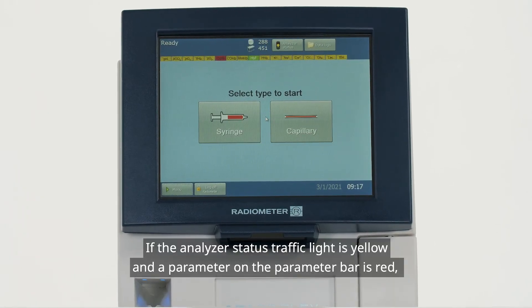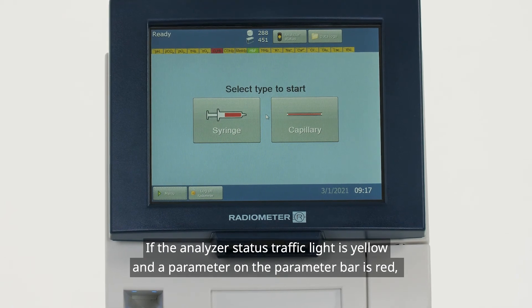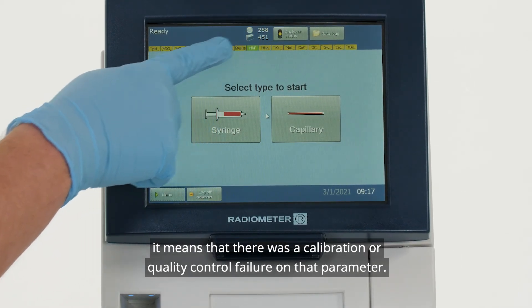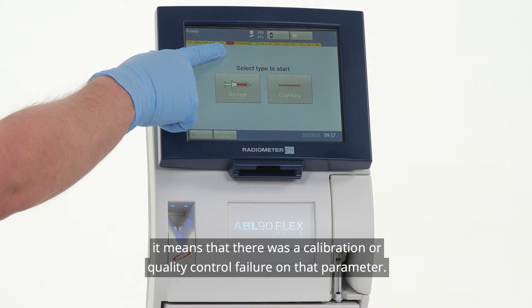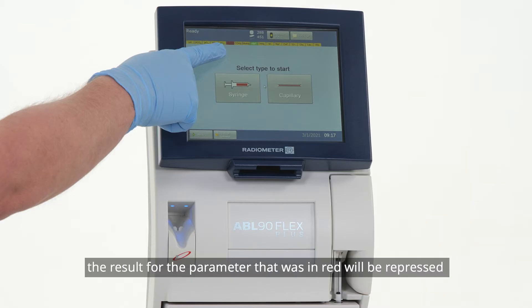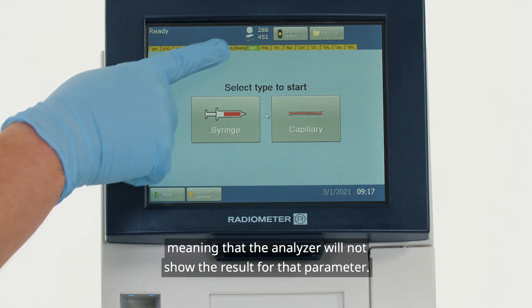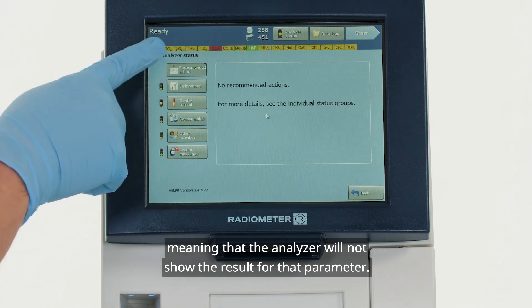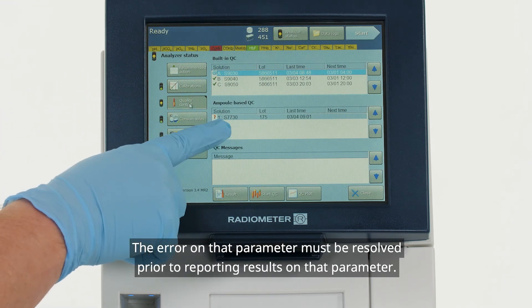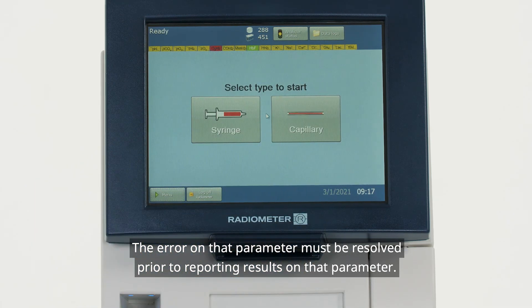If the analyzer status traffic light is yellow and a parameter on the parameter bar is red, it means that there was a calibration or quality control failure on that parameter. While you can still measure samples in this scenario, the result for the parameter that was in the red will be suppressed, meaning that the analyzer will not show the result for that parameter. The error on that parameter must be resolved prior to reporting results on that parameter.